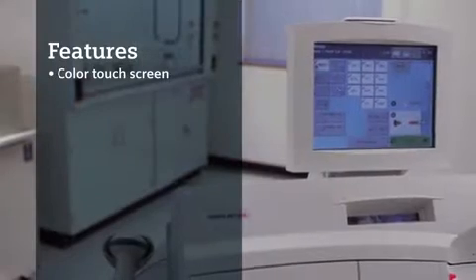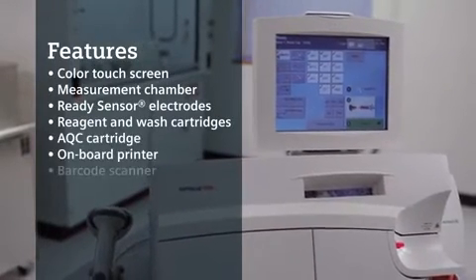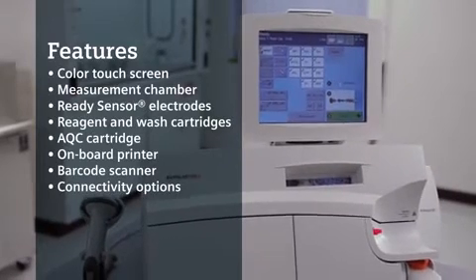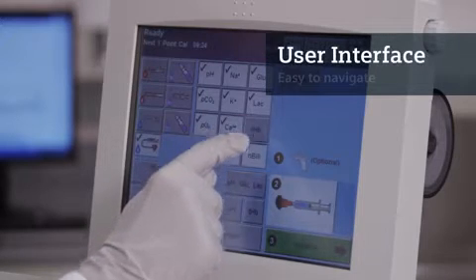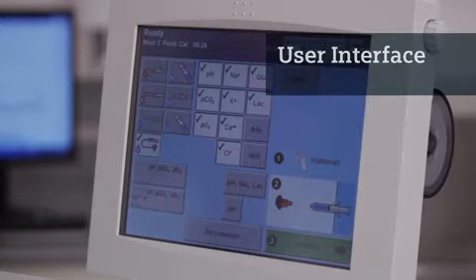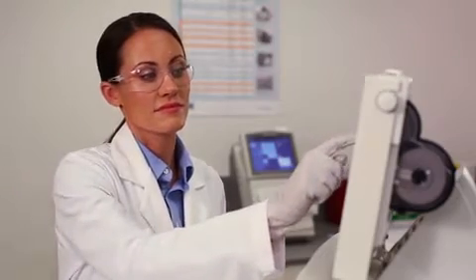Let's take a closer look at the RapidLab 1200 blood gas system to better understand its unique features. The main screen is intuitive by design. Test parameters are clearly visible and easy to select or deselect. The sample type is identified from the main screen.